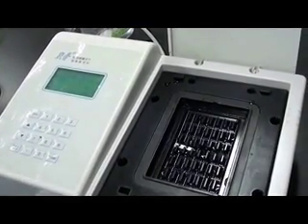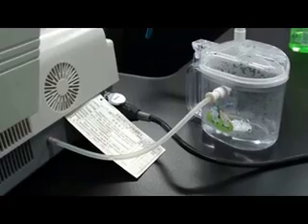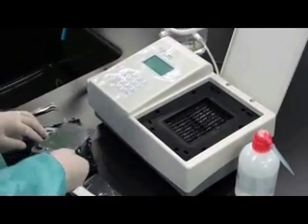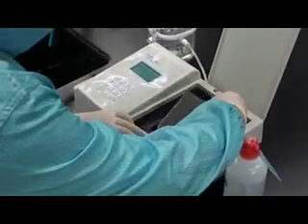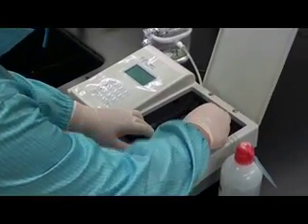First, turn off the pump. To begin the setup of the other components, insert the porous plate.